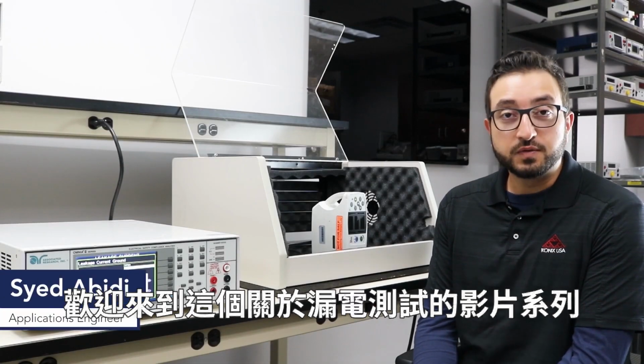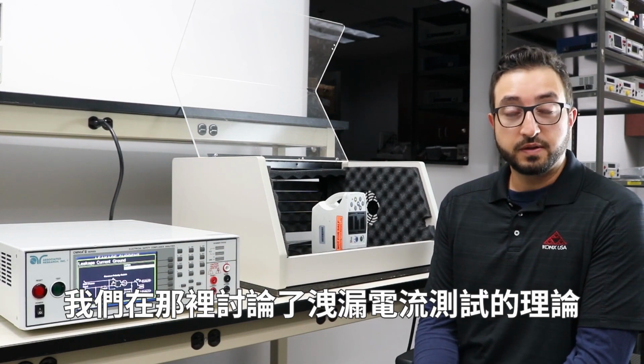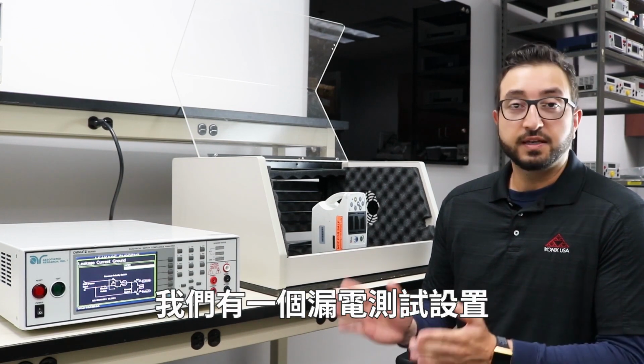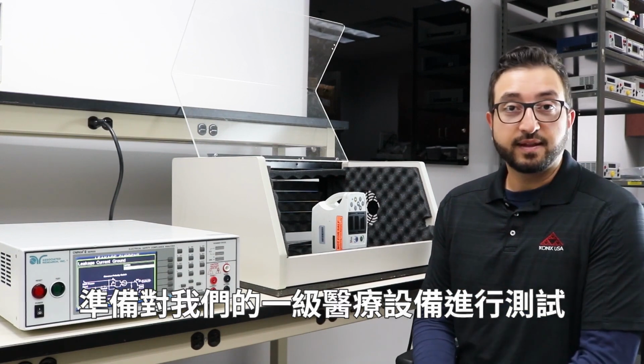Welcome to part 2 of this video series on Earth Leakage Test. Make sure you watch the first part where we talked about the theory of the Earth Leakage Test. In this video, we are in our lab. We have an Earth Leakage Test set up, ready to be performed on our Class 1 type medical device.